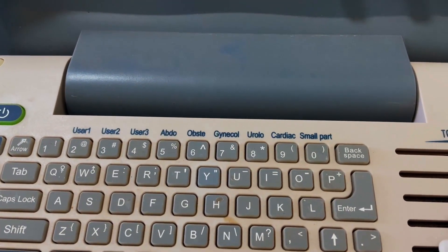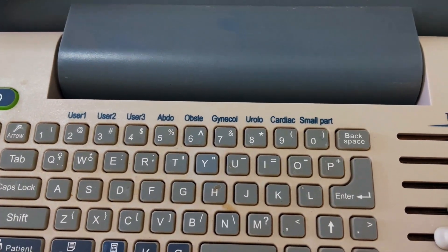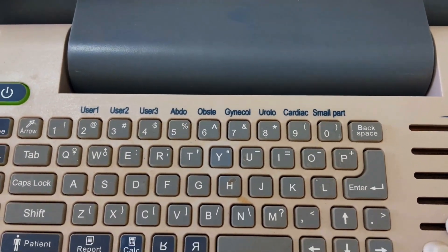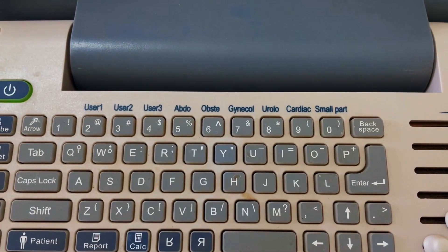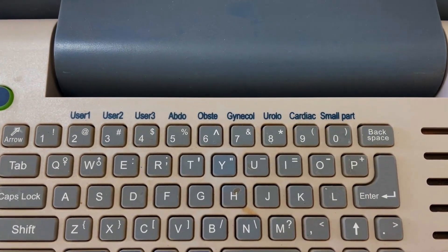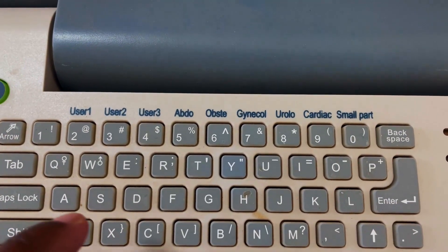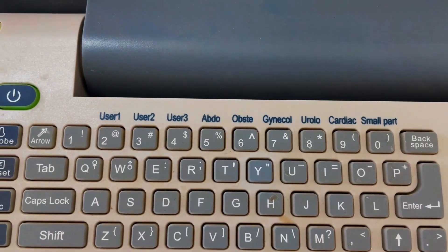Here it is showing different types of examination systems: abdomen, obstetrical, gynecological, urology, cardiac, and also a small part.